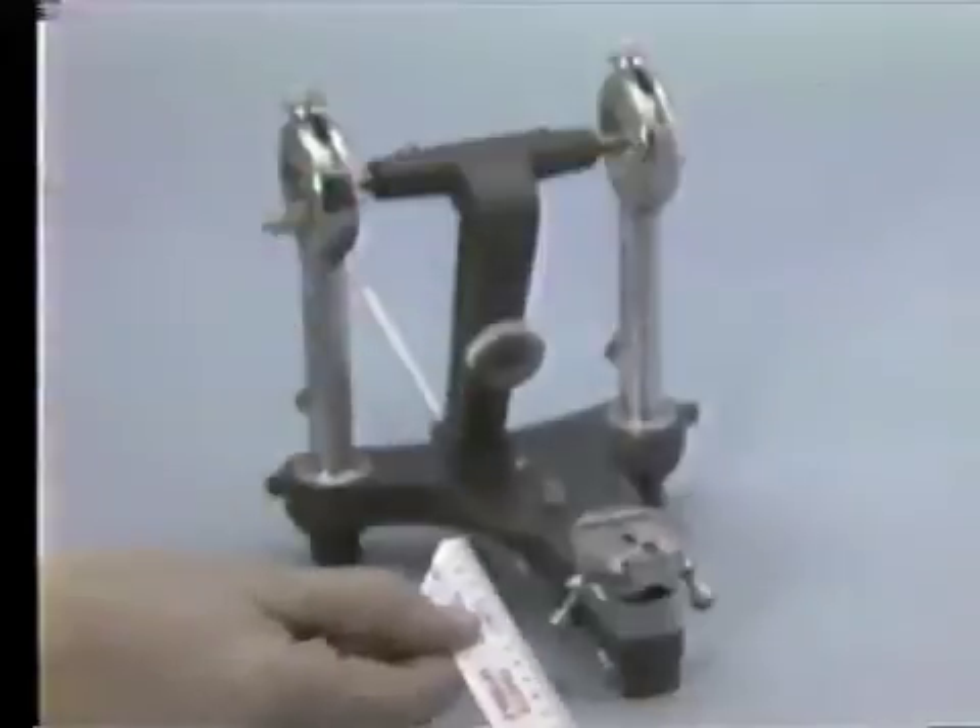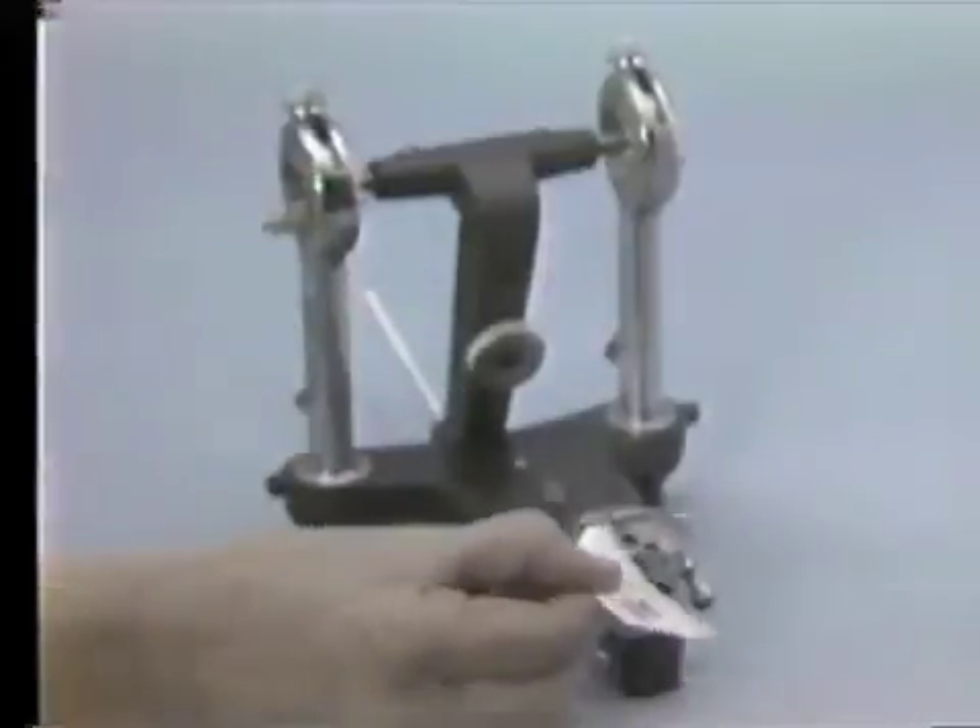In any case, you will have to raise or lower the pin until it does contact the AP center of the table, which is approximately 13 millimeters.